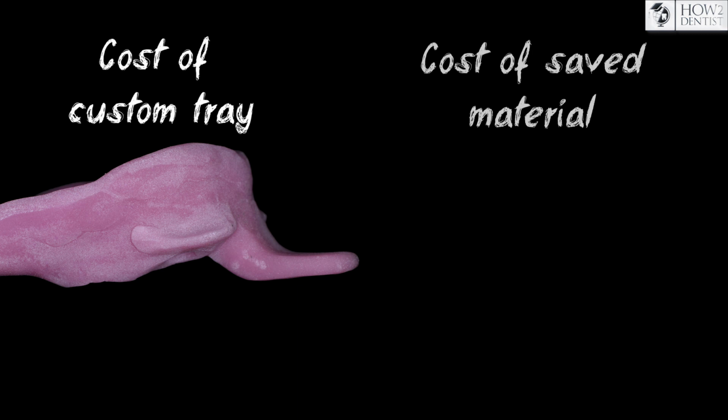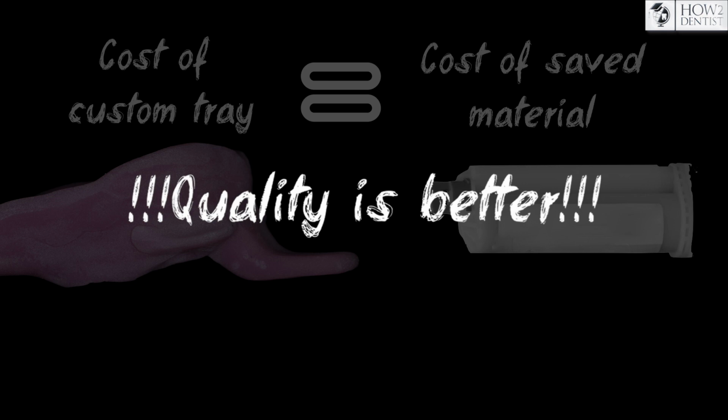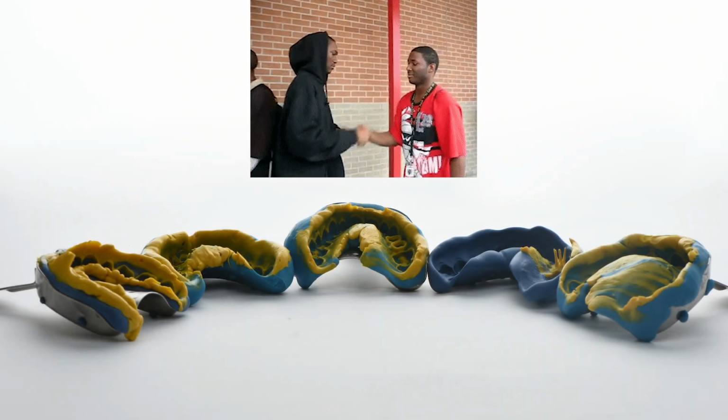The cost of a custom tray is the same as the cost of the material saved by using a custom tray, but the quality is much better. We hope this video will be useful for dentists and technicians.